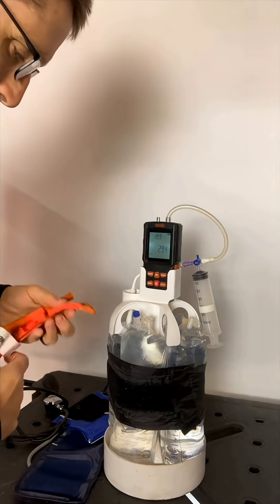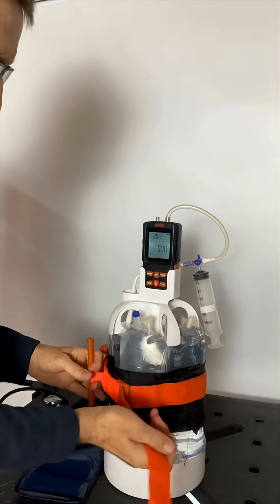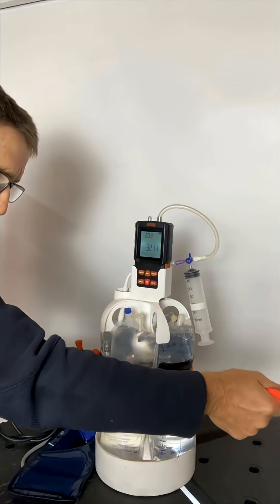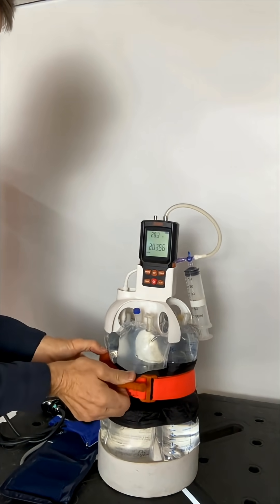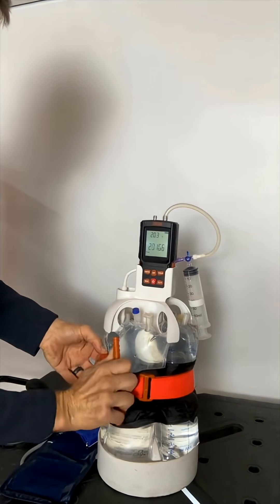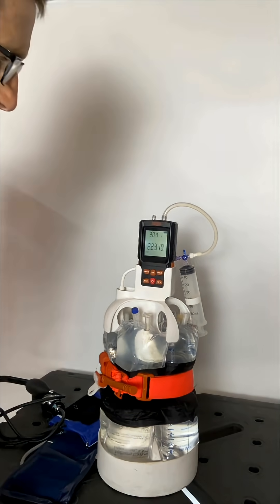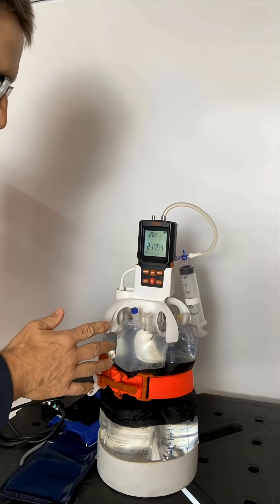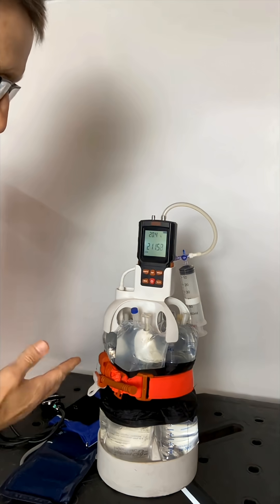For starters I'm just going to put a CAT tourniquet onto my manometer here and I'm going to zero it out, crank it down as far as I can. You can see that got into the mid 200s and pressure decrement happens right away.